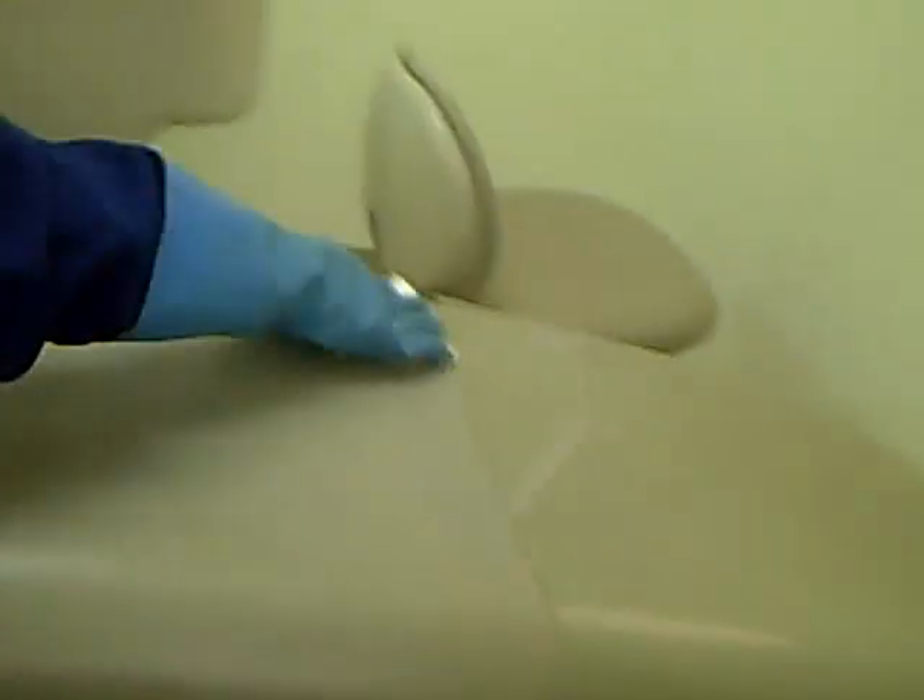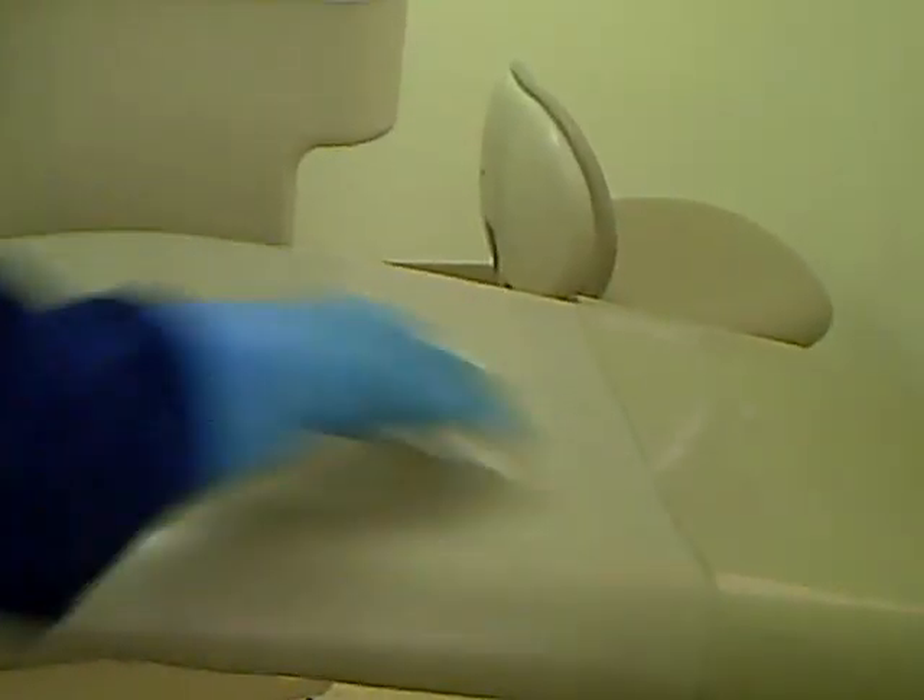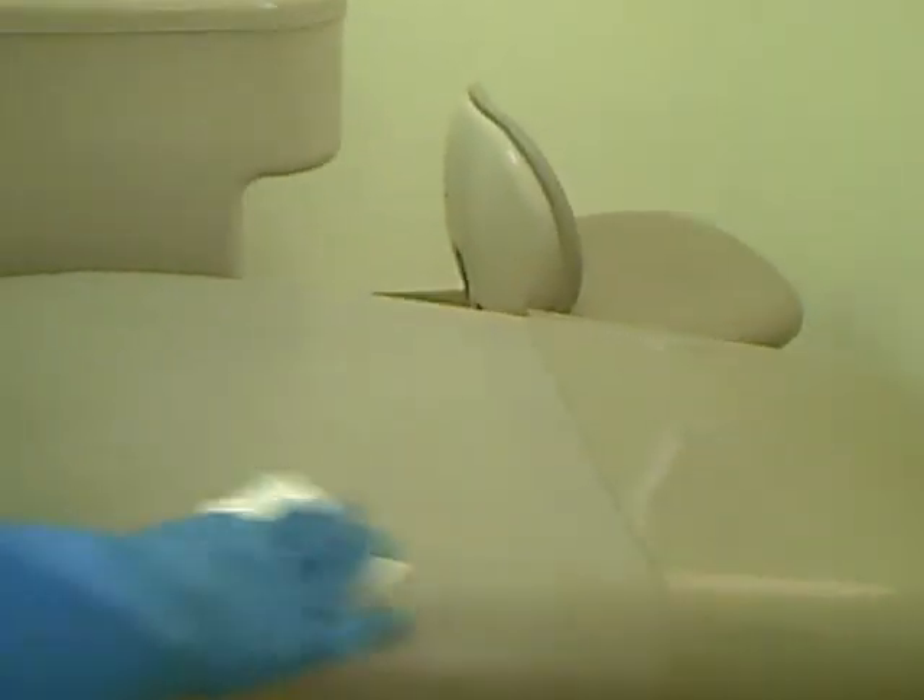While wiping the seat of the chair, push the debris down to where the patient's feet would rest. Wipe the plastic footrest, and then discard the gauze.